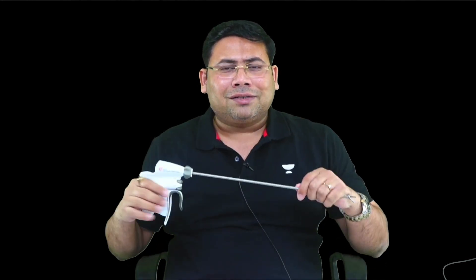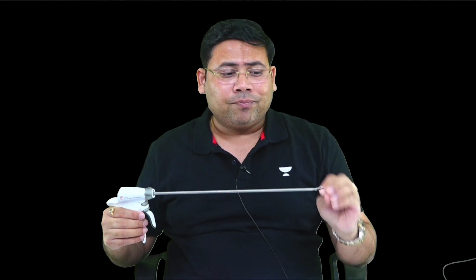The third instrument I'm going to discuss is the harmonic scalpel. Why is it called a harmonic scalpel? There are two jaws — one is white in color and one is black. The black jaw is the active piezoelectric jaw which can vibrate forward and backward. Since it is vibrating, it acts like a saw — forward-backward movement can cut and seal tissue.